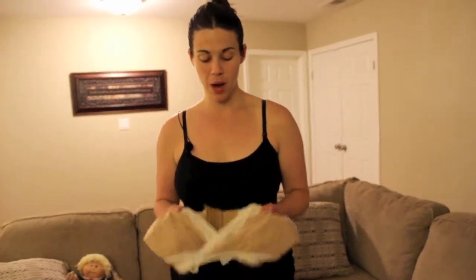Hi, I'm Ashley with ThankfulMama.com, and tonight we're going to talk about something that's not just for our babies, but also for us too, to kind of help make our life easier as a nursing mom. If you are a breastfeeding mom, tonight I'm just going to give a quick review on the Dairy Fairy Arden All-in-One Nursing and Pumping Bra.